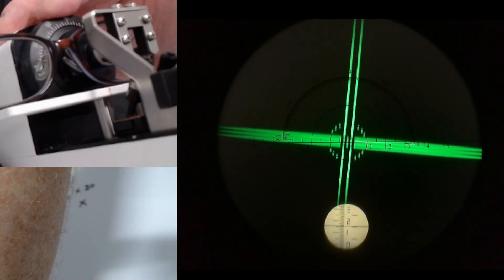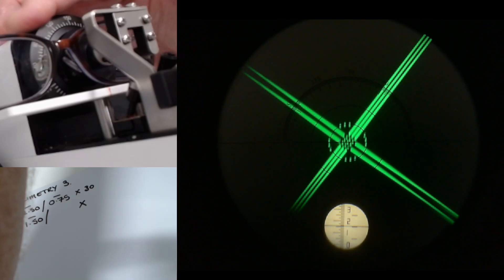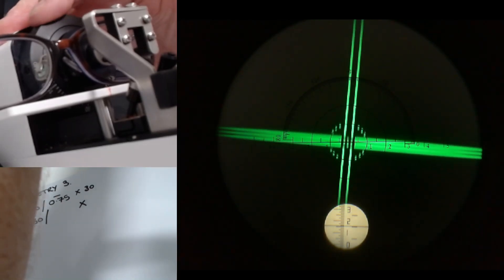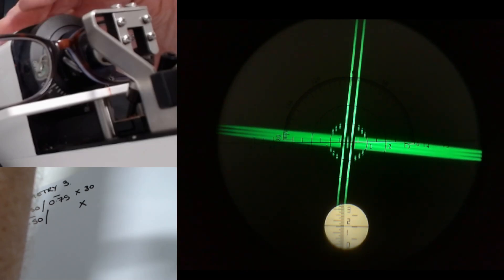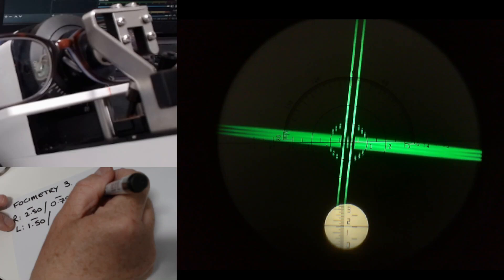It comes out just below zero, so I'm going to turn the dial all the way around. That tells me it's going to be quite close to 180. So the left eye axis is 175.